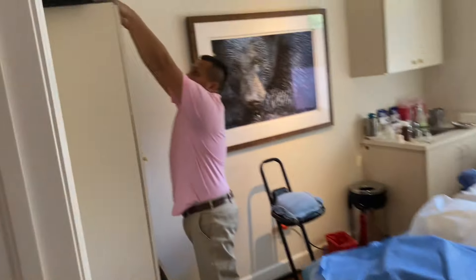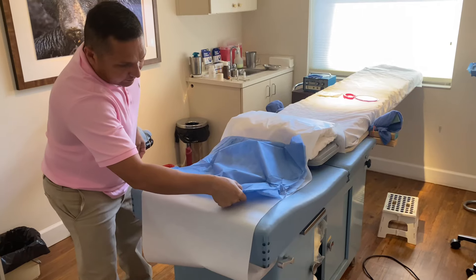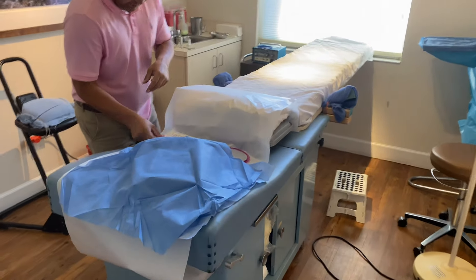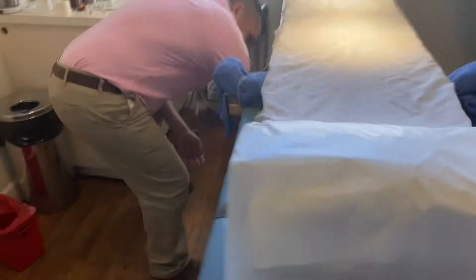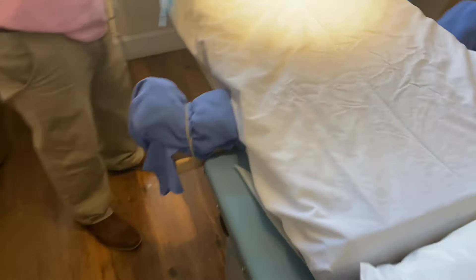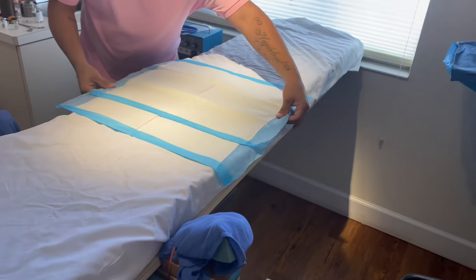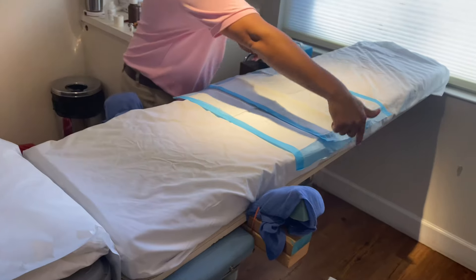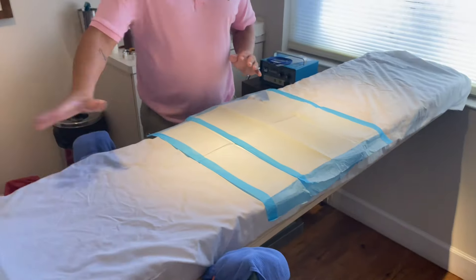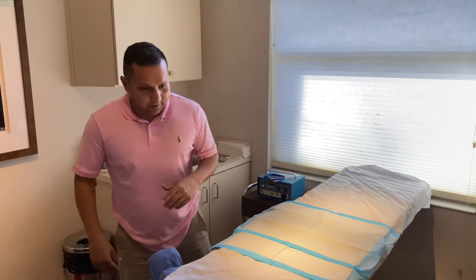We have some extra trays up here to make the pillow a little bit higher, and it's still sterile — well, the corners have been contaminated. The mirror and the size 7 gloves go right here. On the bottom we have little drawers where the chuck pads are — two is more than enough. This is where the patient's rear buttocks will be sitting. He'll be instructed to sit down here on the stool, hop on, then lie down head this way and feet that way, and Dr. Stein will adjust positioning from there.